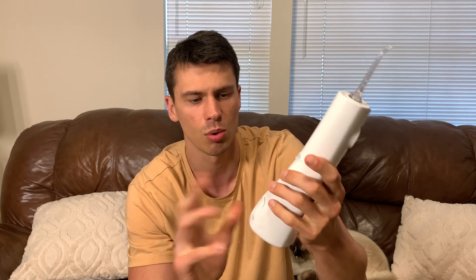I really, really like it. It comes with this little nozzle here — you press this button to change out the tips, and they do lock positively in place. I was very impressed with the build quality of this. Everything works really well.